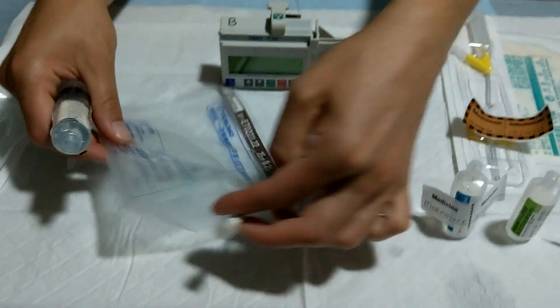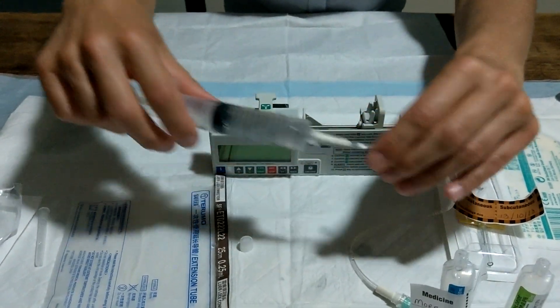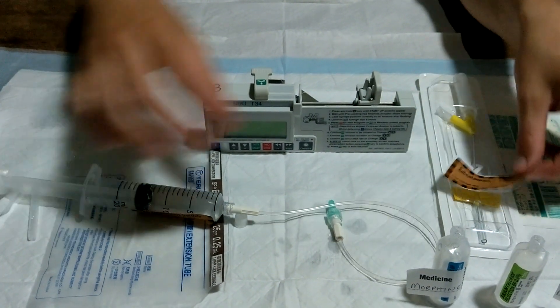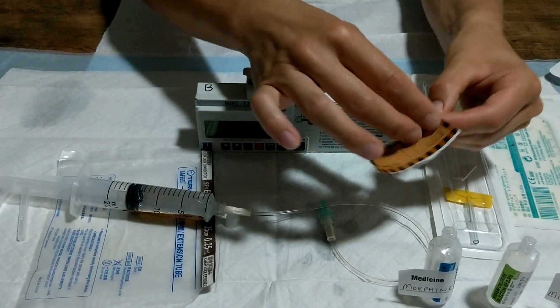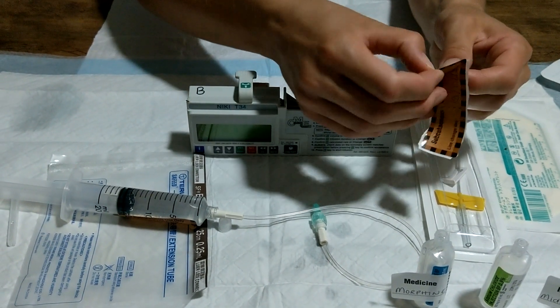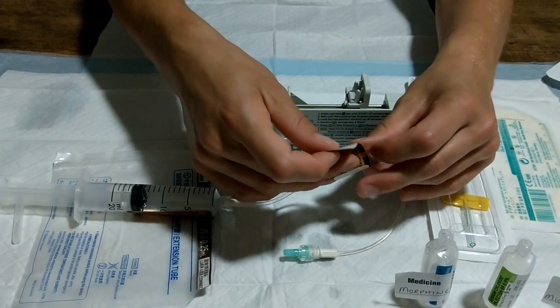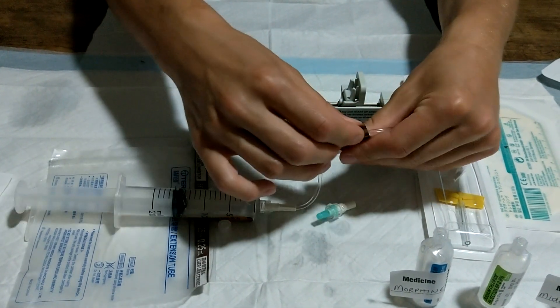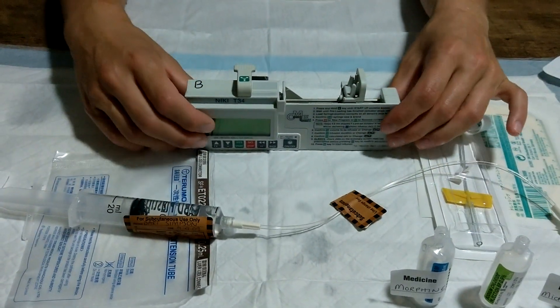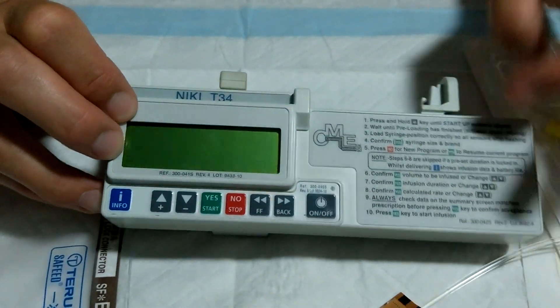You're going to prime your extension tube with medication and label your line. These extension tubes last three days, unless there's of course the need to change it beforehand. Once that's all set up, you can move on to the syringe driver itself — turn it on simply with the on-off button.